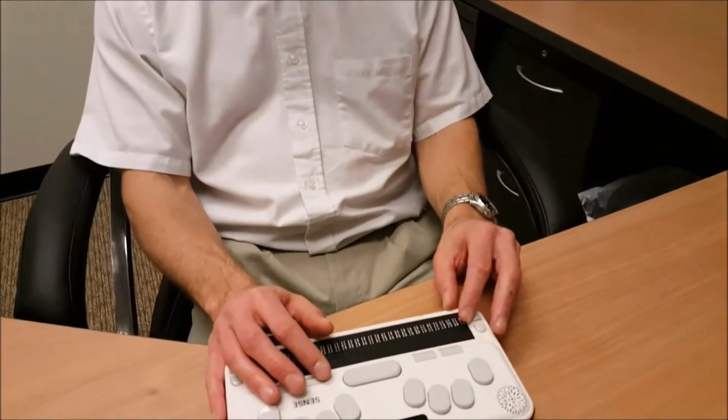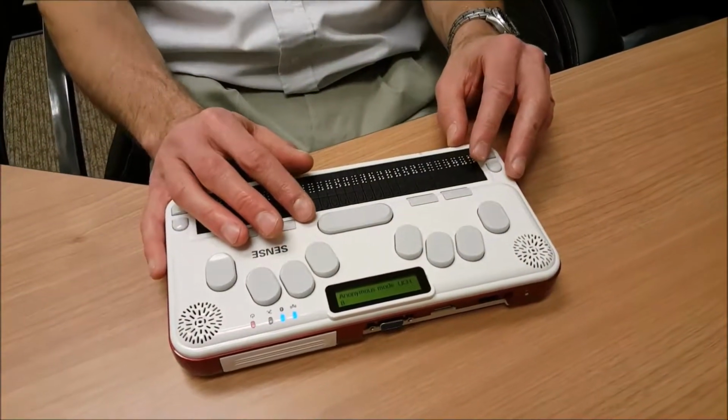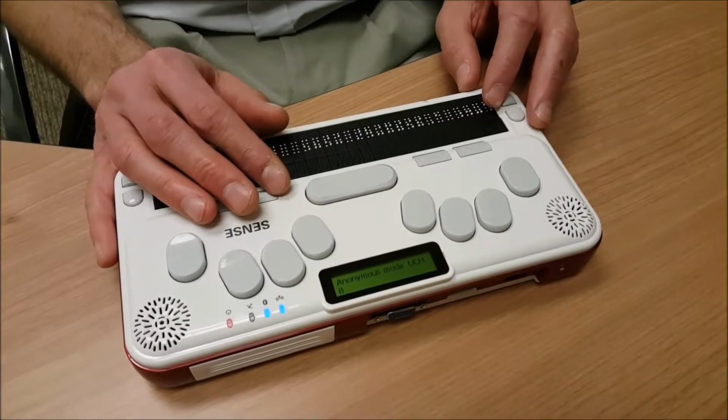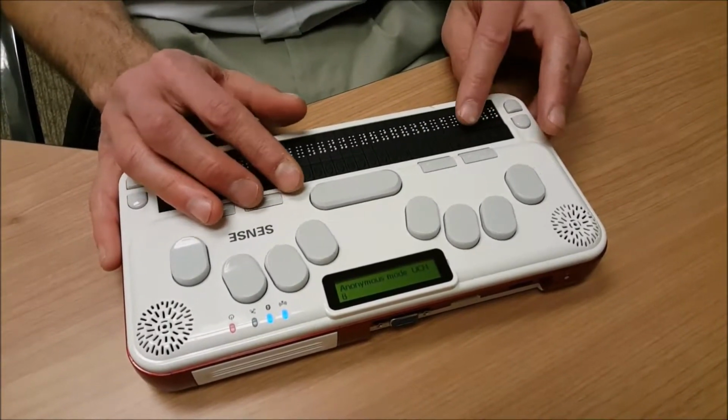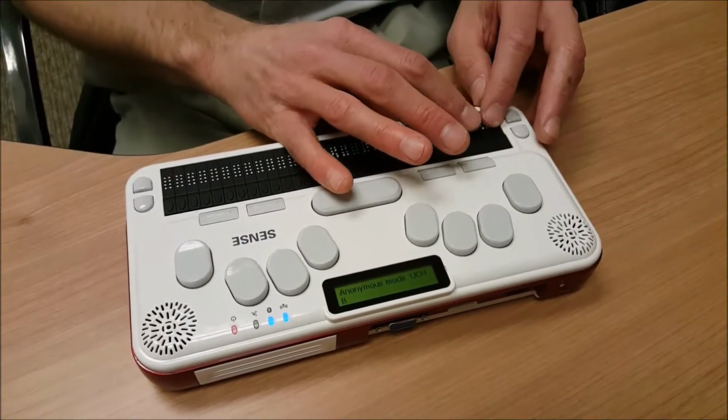Note that if you are using UEB, you will not have to use computer Braille at any time. I've finished typing in my Bookshare password, so I'm going to press my Tab key or Function key 3. Anonymous mode. Checkbox unchecked. The anonymous mode allows one who does not have a Bookshare account to log in and search for books and download books that are not copyrighted. This box is unchecked by default.